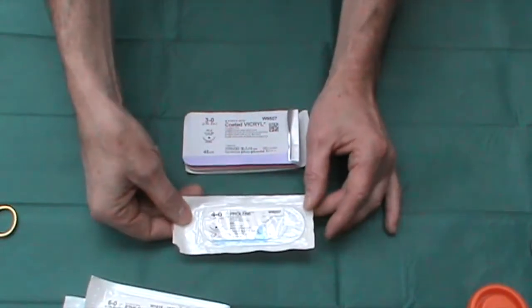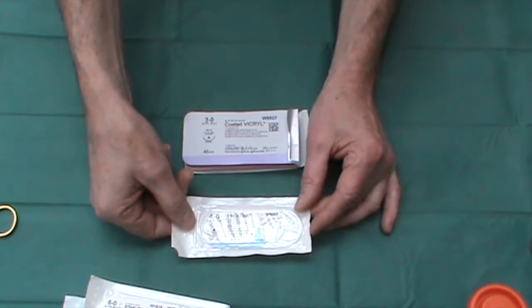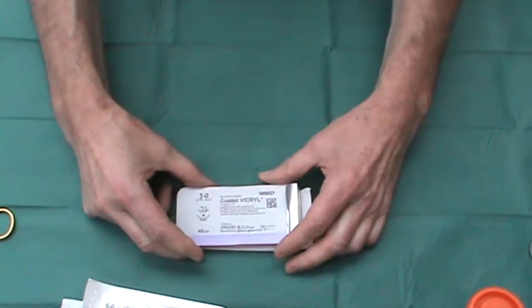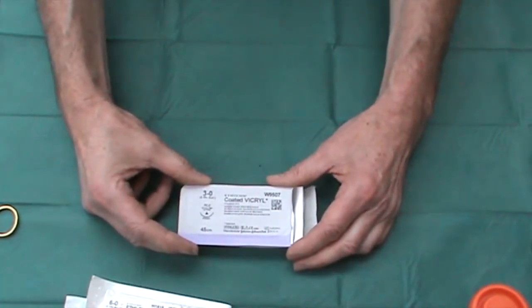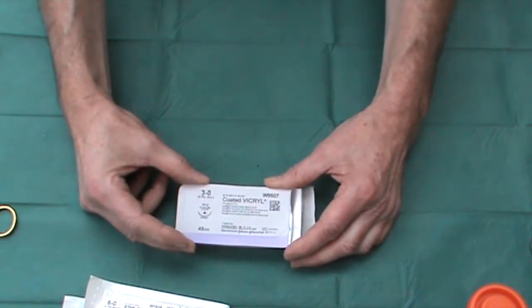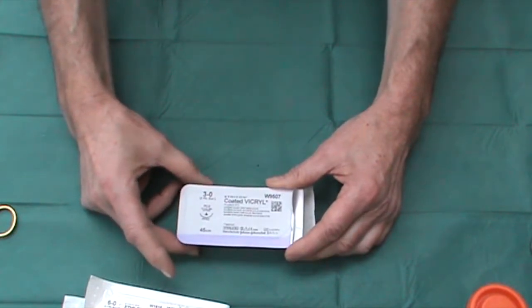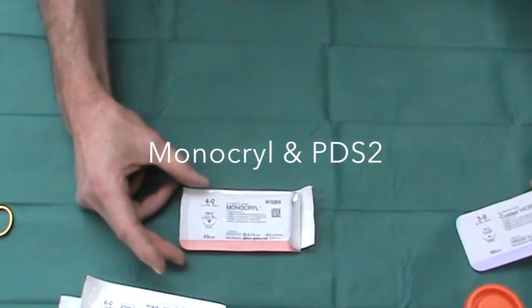Some people prefer Prolene. There are different characteristics, but both Prolene and Ethylon are excellent sutures. When it comes to absorbable sutures, people often think in terms of Vicryl — coated Vicryl on a 16mm needle. Personally, I never use this material, because it is a braided material and therefore the chance of infection and of developing little sterile abscesses is much higher with this.